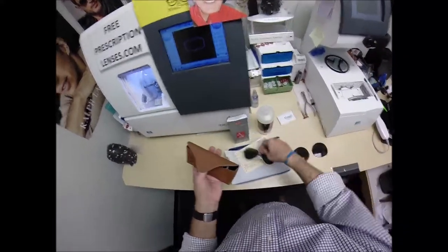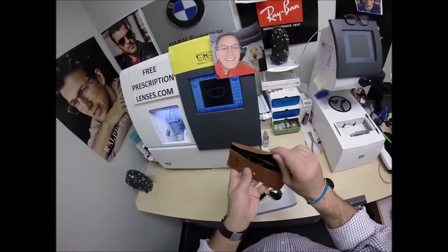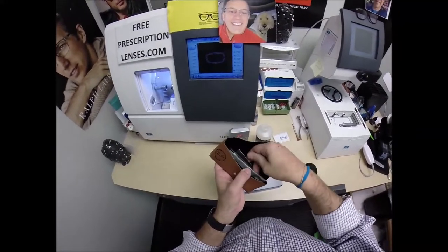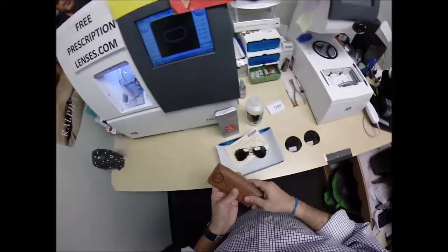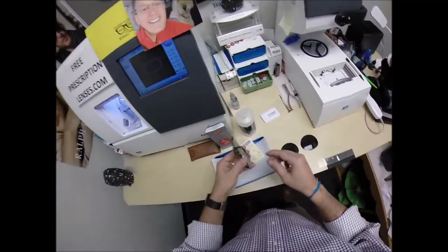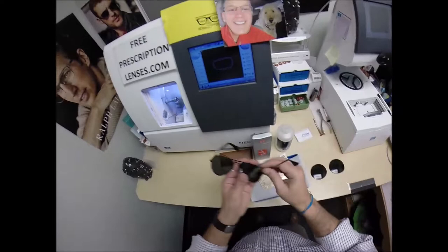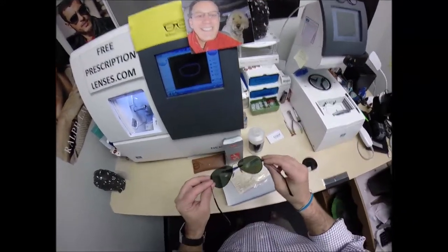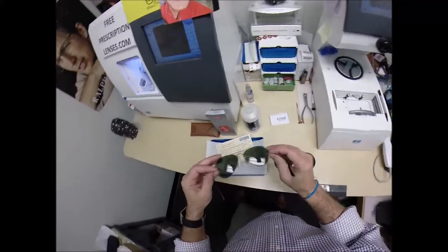Take everything out. This is your Italian leather case, Ray-Ban cleaning cloth, junk mail. But that's not what you came to see. You came to see me work on these things. It comes with a little plastic sleeve on the temple. I'm going to take that off so I can get started. Let's just double check, that is the 58 eye size. Let me begin.